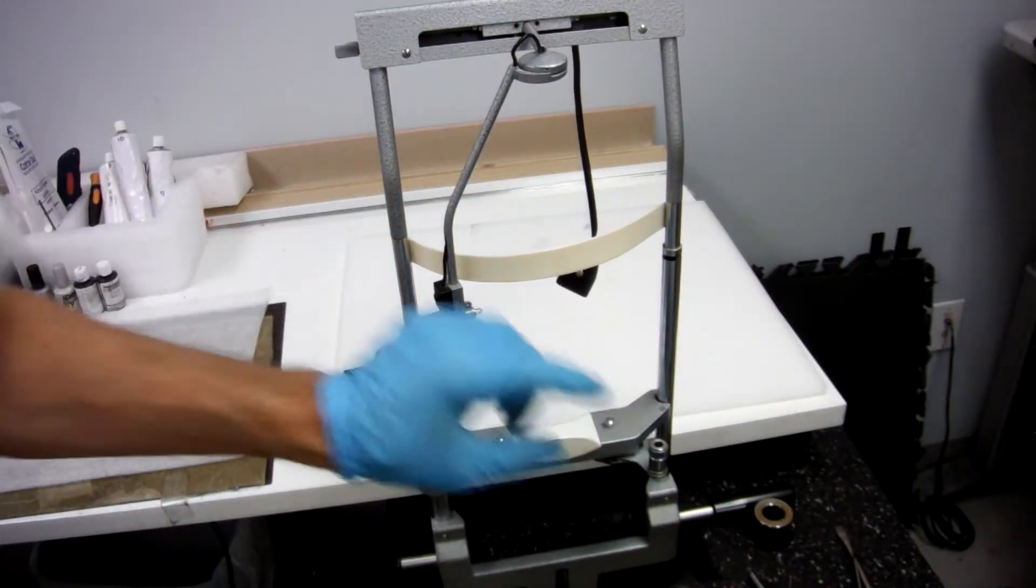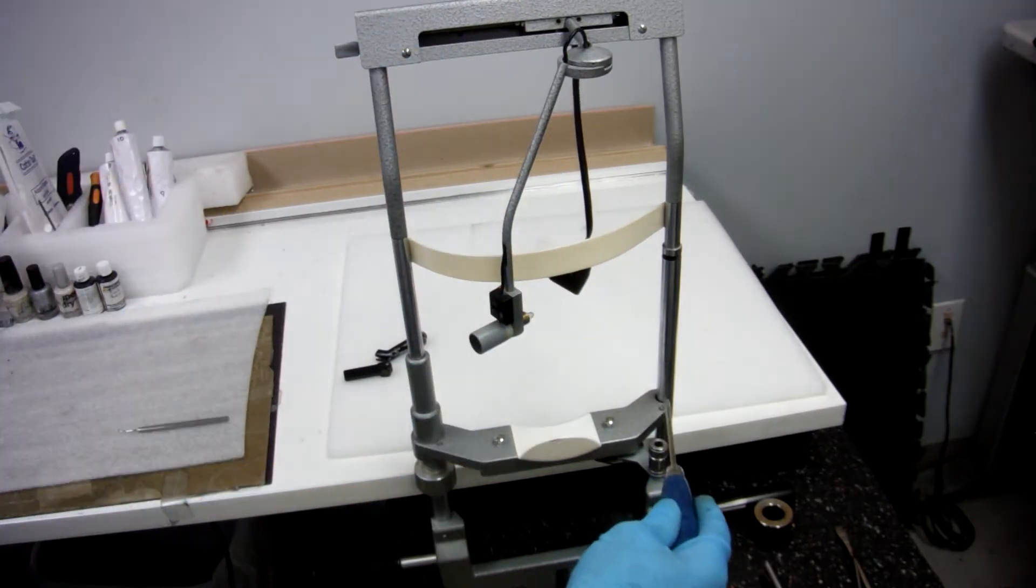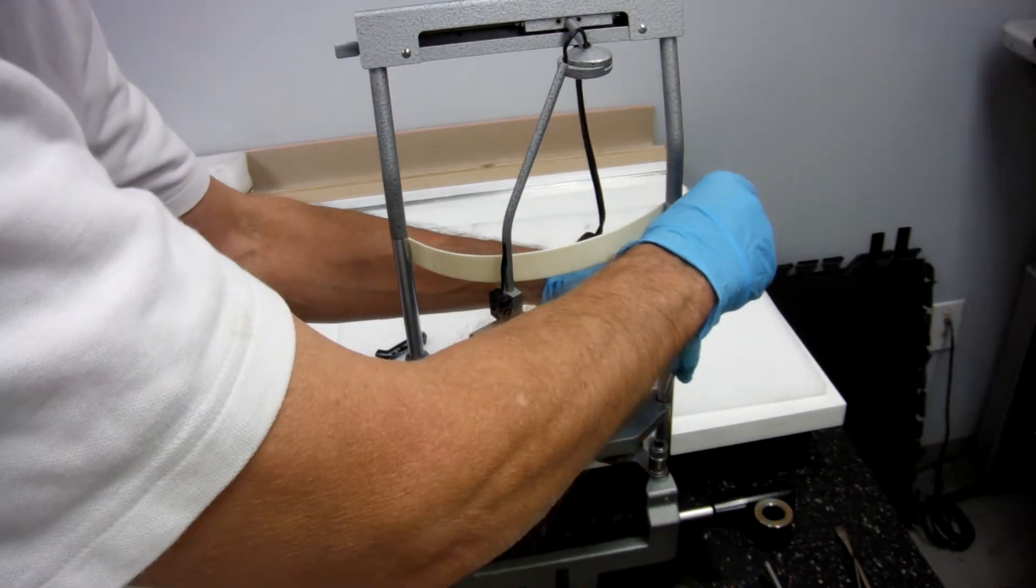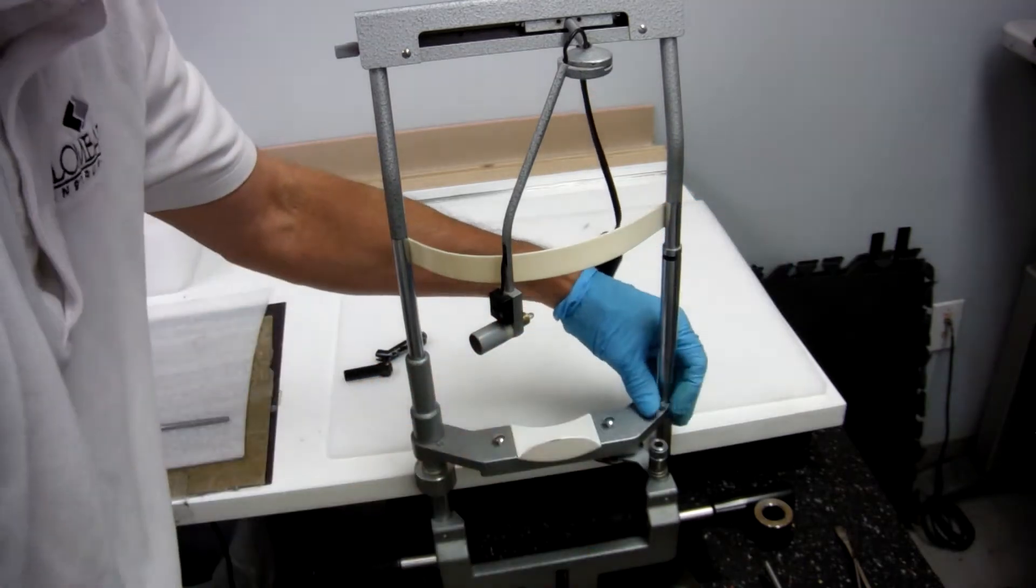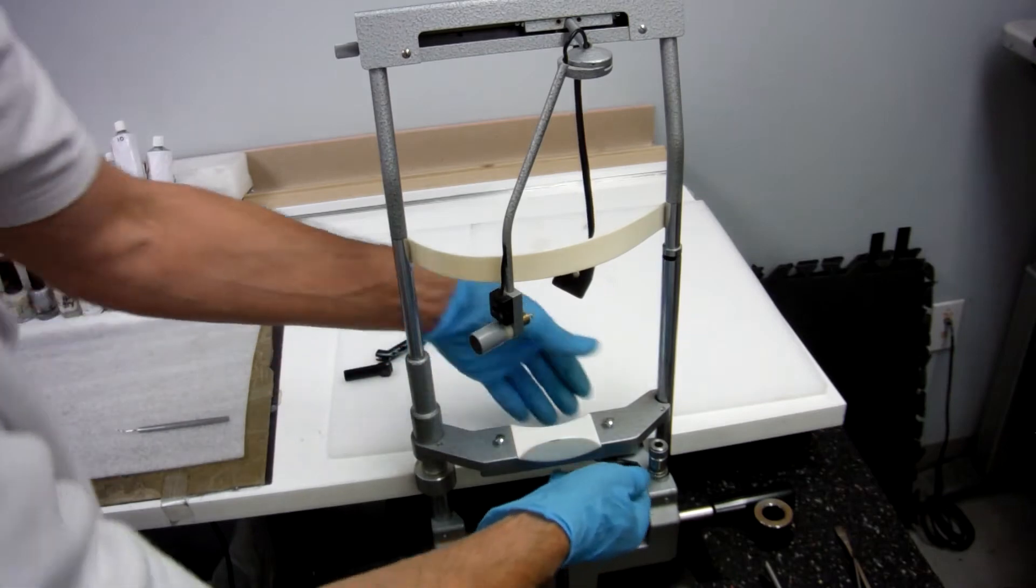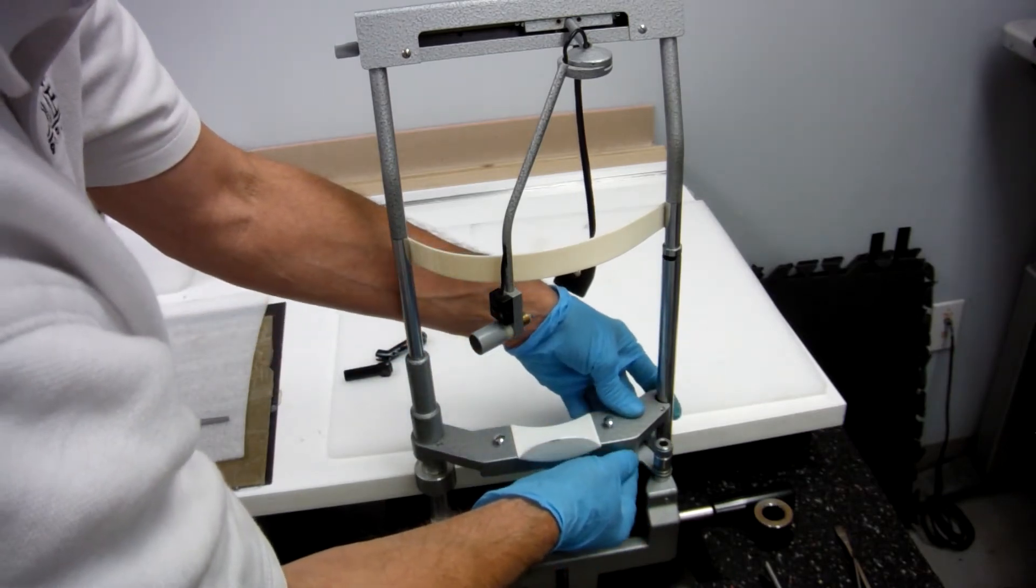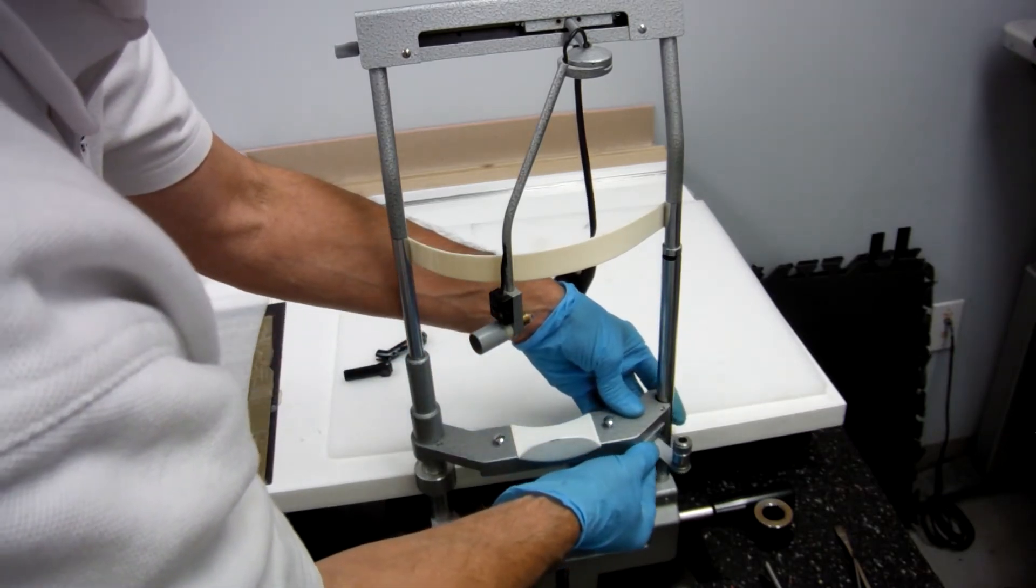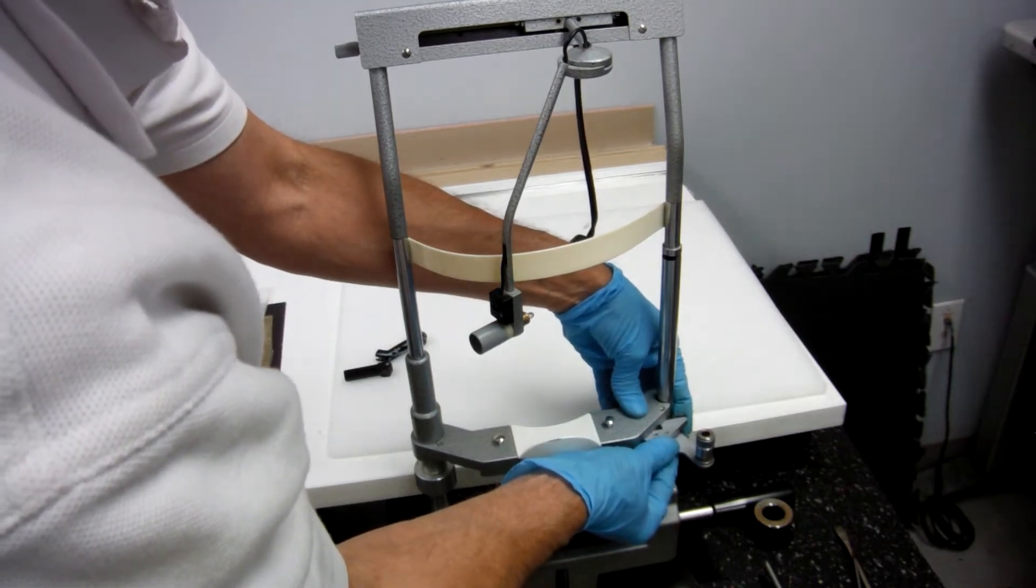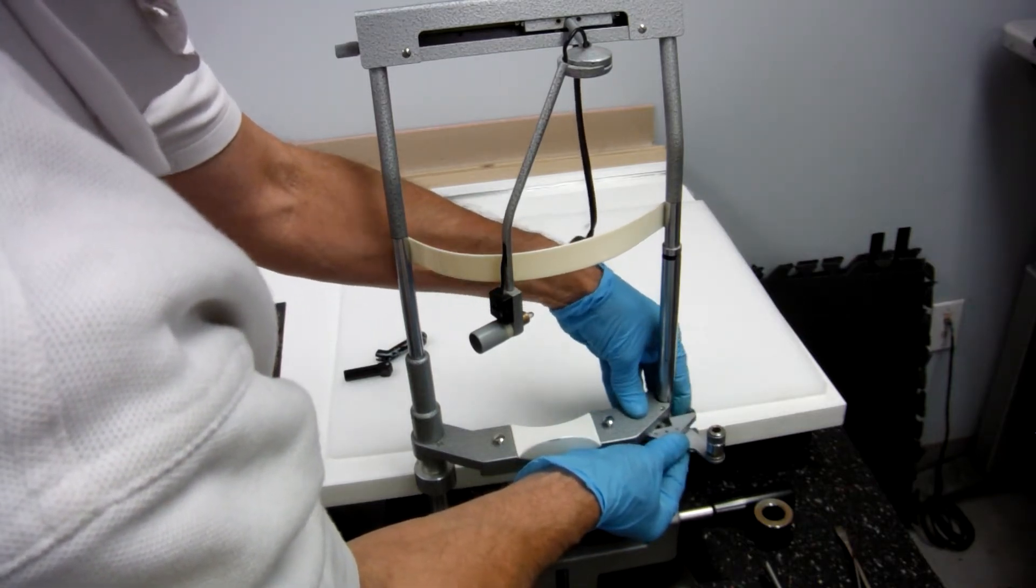We're going to take this off and this off. There's a screw on either side. Just slide your ruby lens holder to one side or the other. When it comes out, it's going to have a spring and a plastic contact on the end.